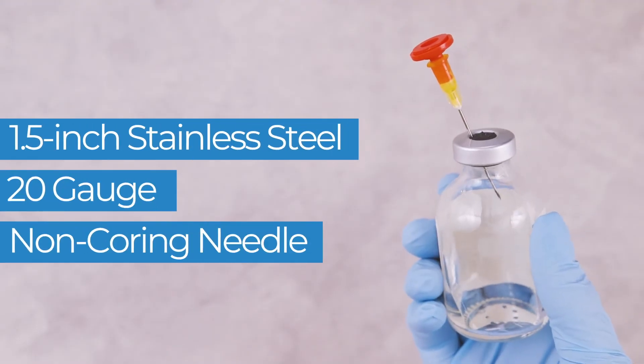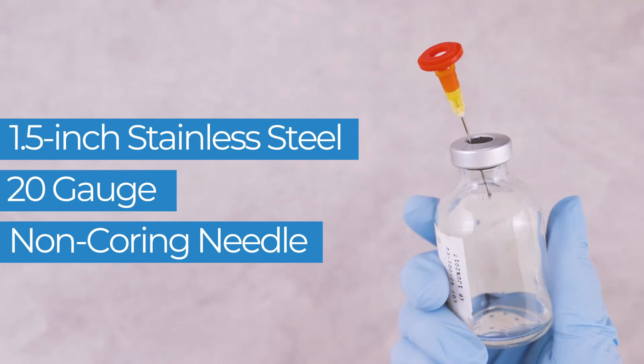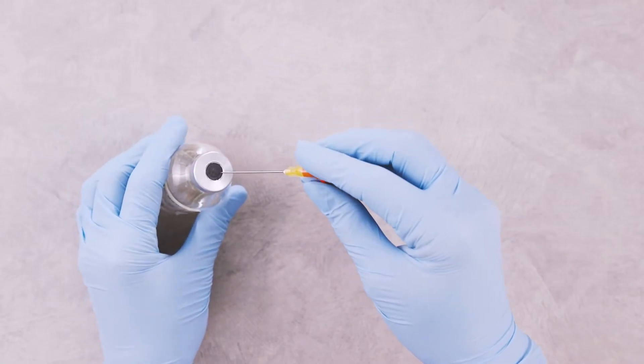The 1.5-inch, 20-gauge, non-coring needle easily penetrates all stoppers with minimum risk of damage.